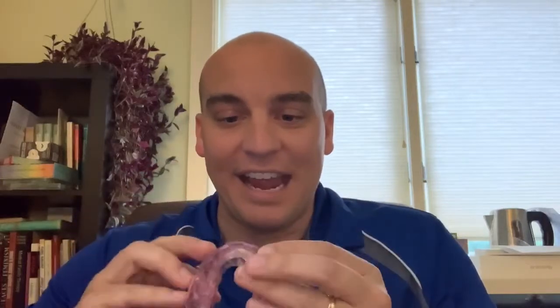What this is, is the brand new Somnodent Herbst Advanced Elite. For those that don't know, this is a milled Herbst with a soft liner. This is supposed to be a much thinner device than their traditional Herbst Advanced, and I am expecting this, like all my other Somnomed devices, to have an absolute perfect first fit.